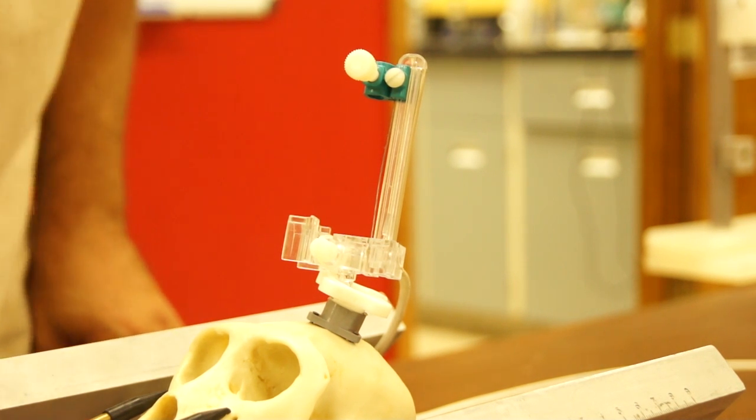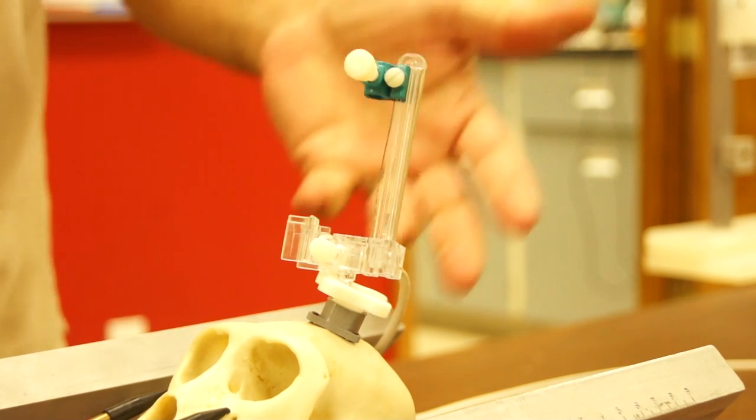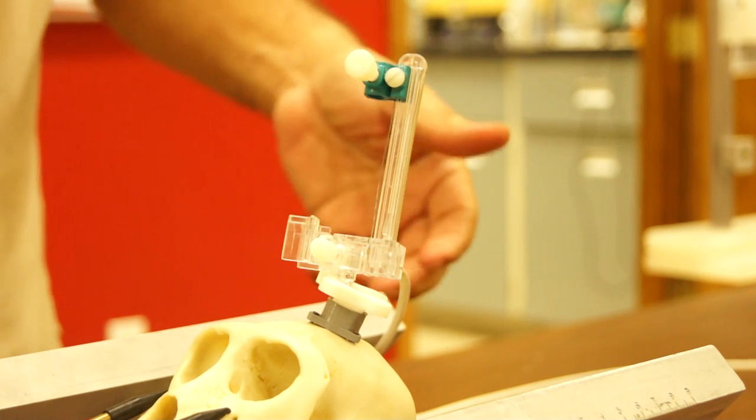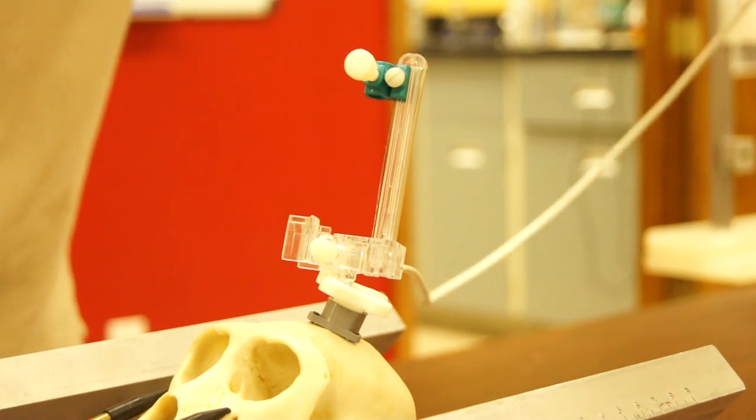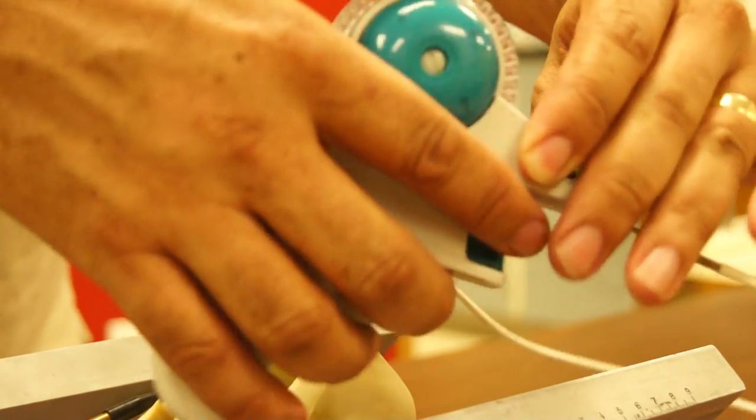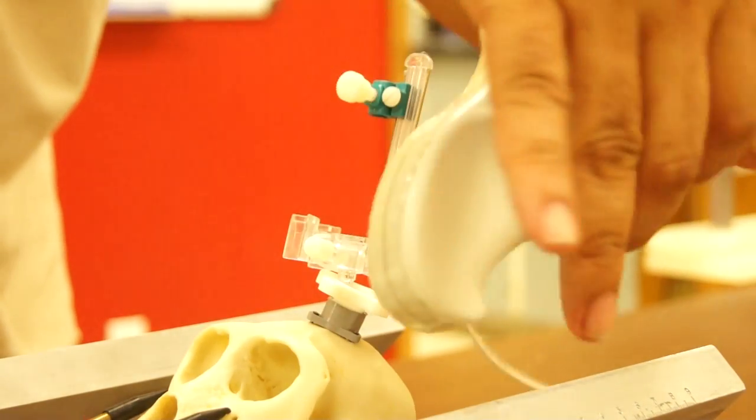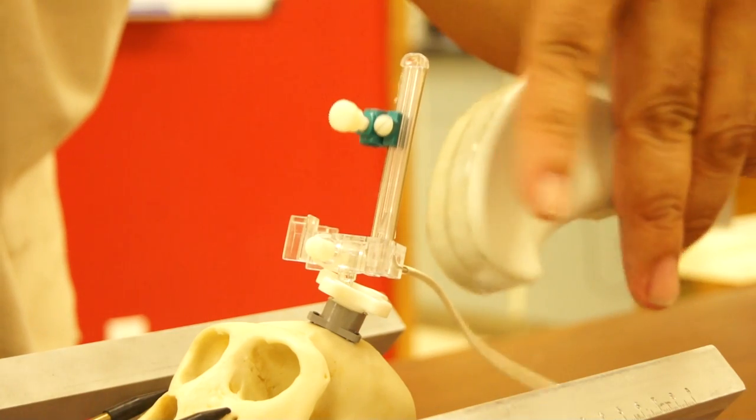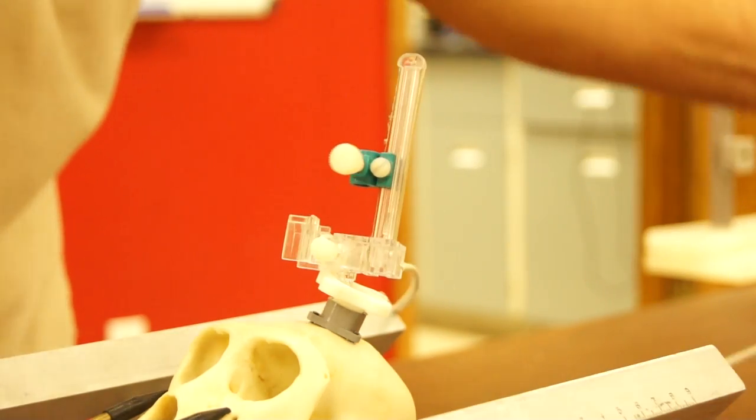Okay, this is the way we currently do things. This is the remote introducer used to advance catheter into the brain using this handheld controller, cables and pulleys and whatnot.